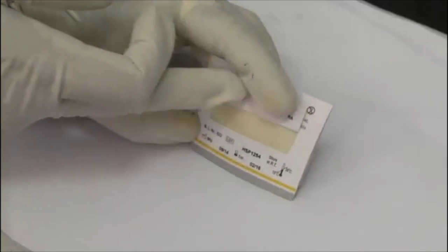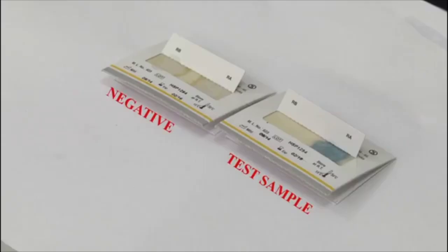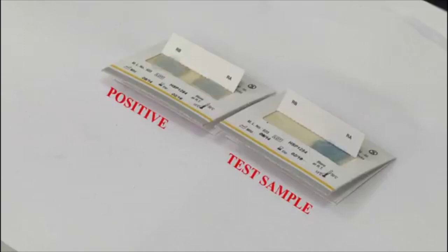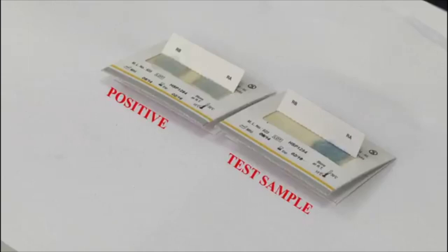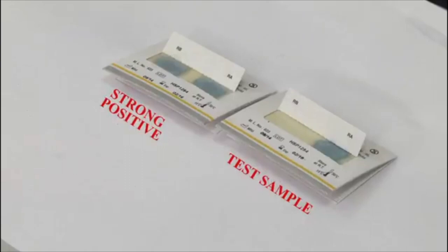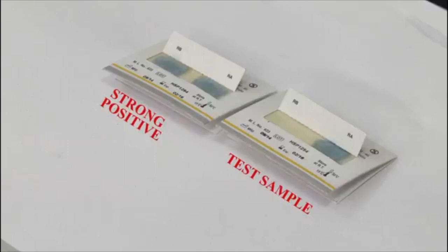Interpretation of results: no blue color indicates absence of occult blood in the stool. Trace blue coloration indicates presence of approximately 5 mg per deciliter of occult blood in the stool. Strong blue coloration indicates significantly more than 5 mg per deciliter of occult blood in the stool.